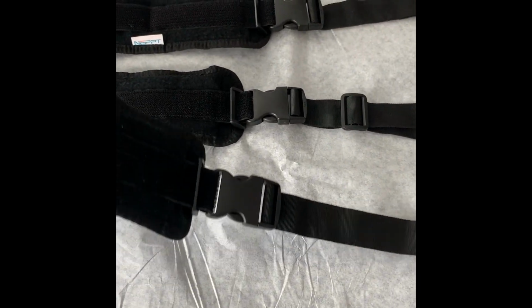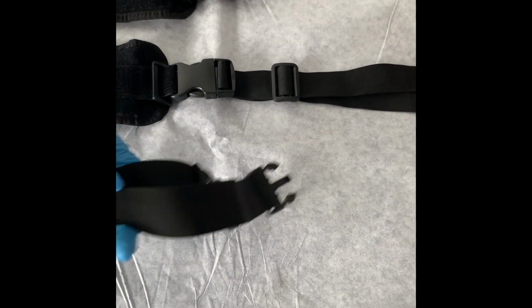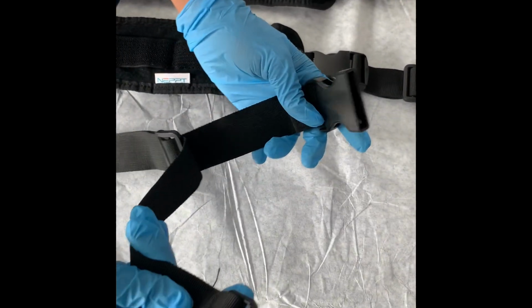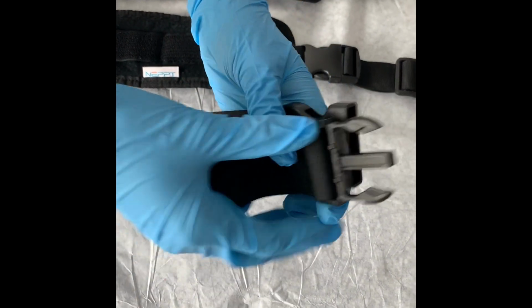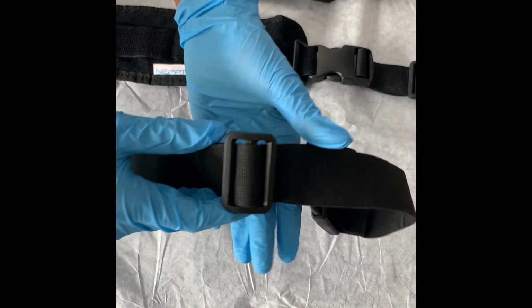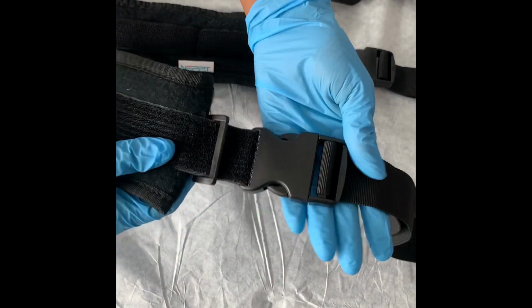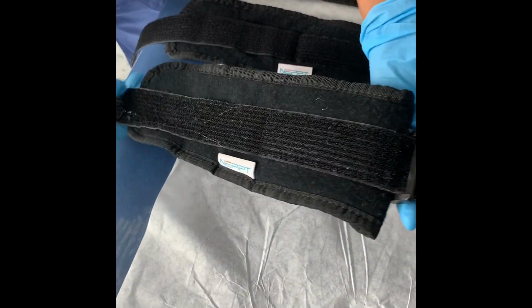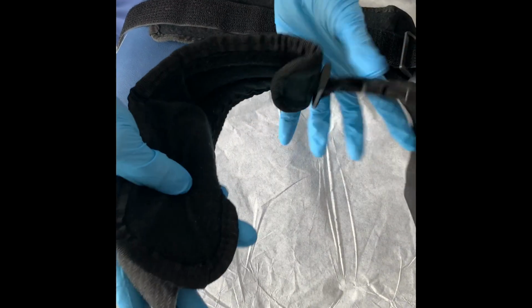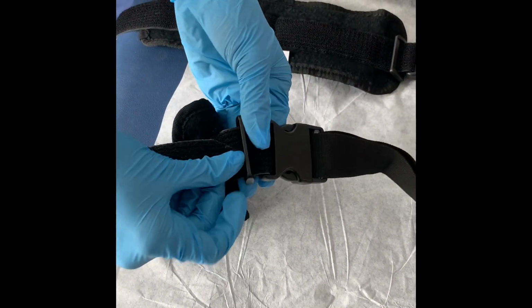Restraints. Sometimes we might have to restrain a patient in healthcare. These are soft restraints. This part of the restraints gets connected to the bed or the patient's stretcher, the patient's wheelchair. These are soft restraints. Soft restraints are used on patients who are pretty much confused. This is not the restraints that you'll actually use on a mentally ill patient.